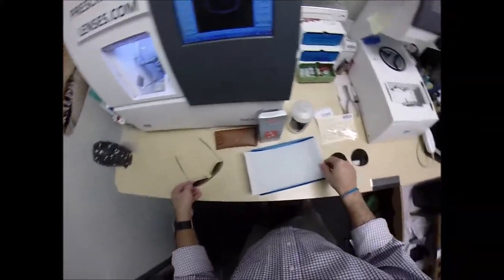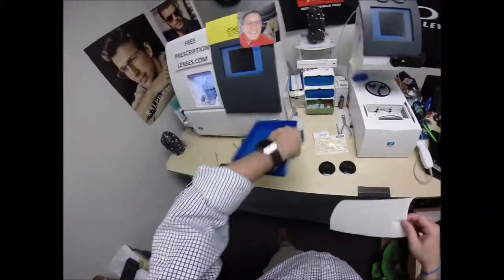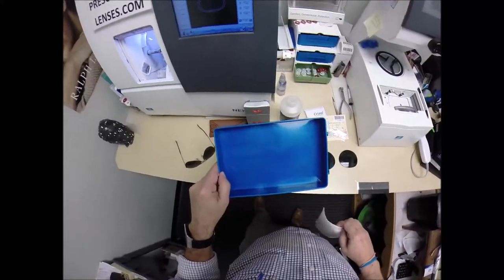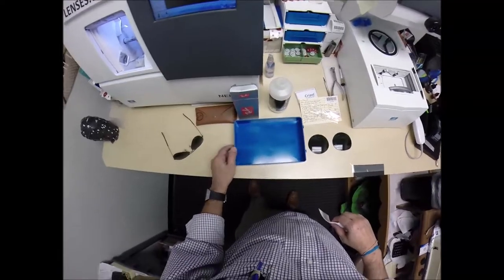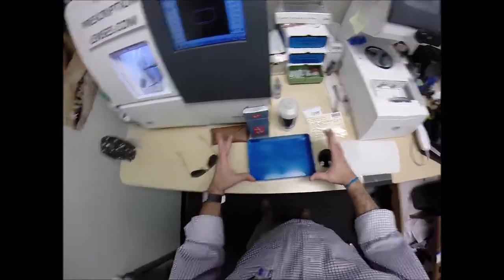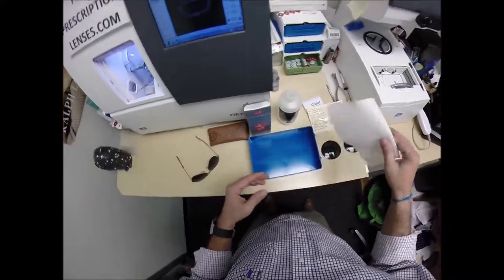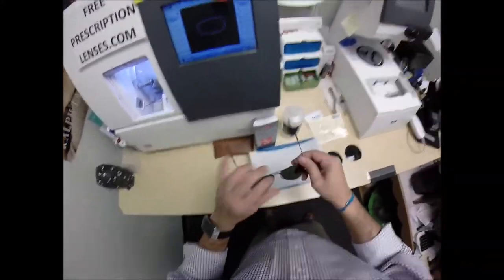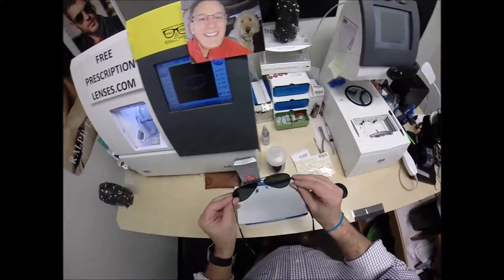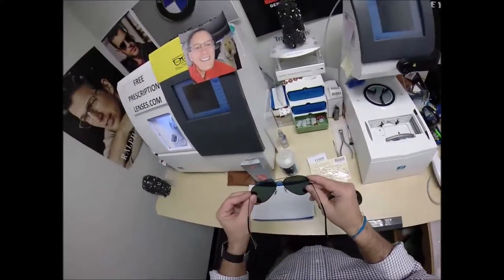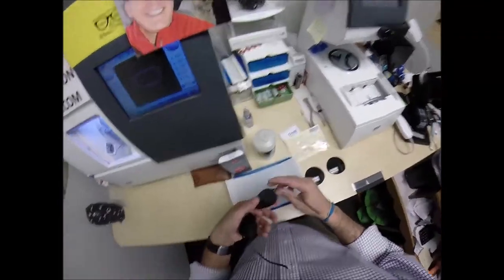Here's something you normally don't see in my videos. A job tray. For anyone, I've had requests on how to change the lenses out, and I'm going to show you. You need a 9x11 baking dish. Get a dish towel or some paper towel in there. Because there are four screws that you're going to take out on this pair. If you drop one of them, you don't want it to hit a hard surface and bounce on the floor. You'll be on your hands and knees all night.